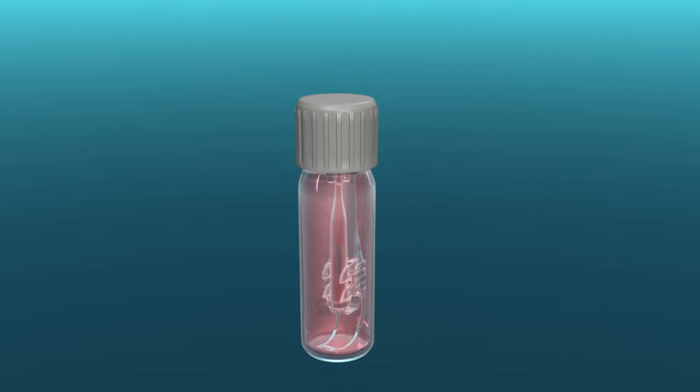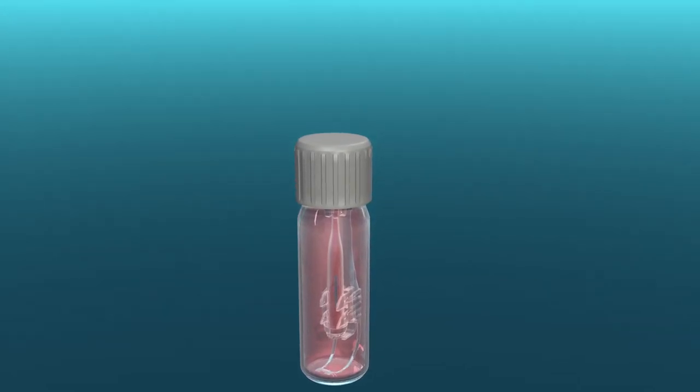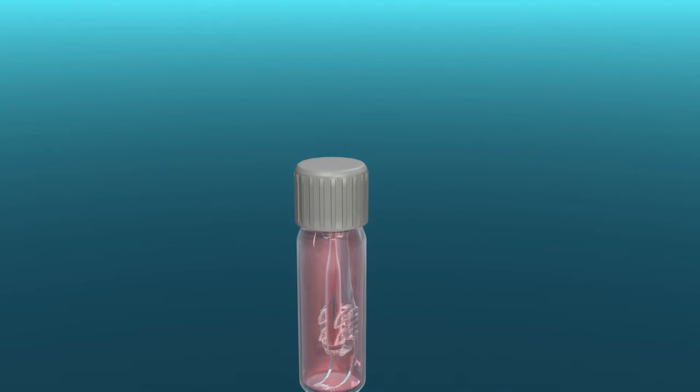Have the technician remove the cap from the flask containing the cannula and hold the flask in an upright position at the edge of the sterile field.